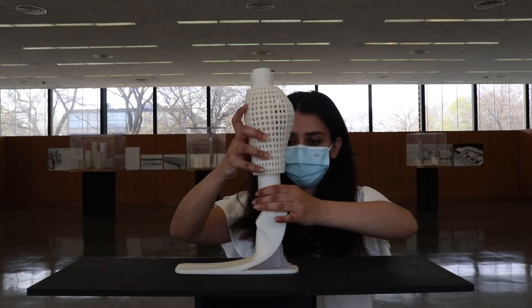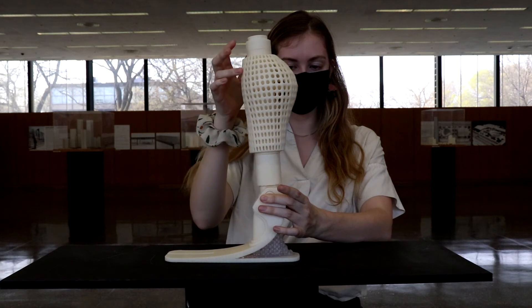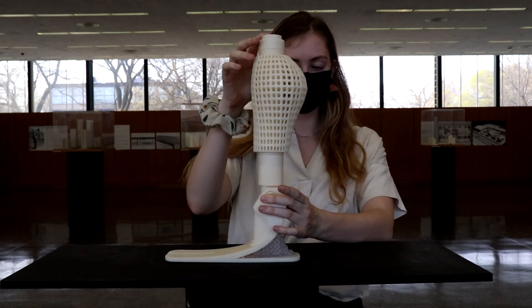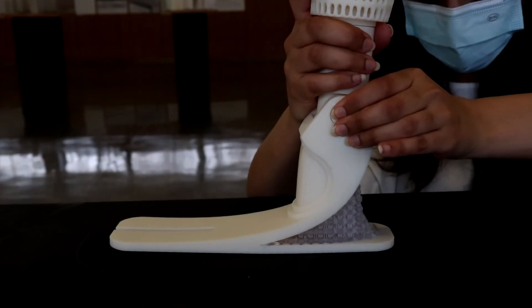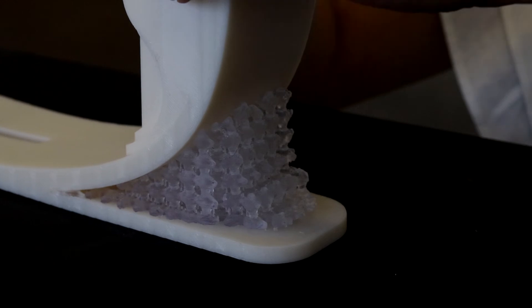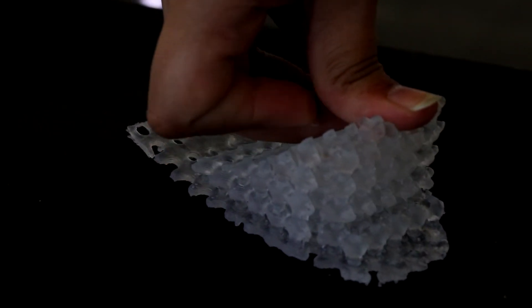The ends of these are twisted and locked onto the ankle and knee joints. They mimic movement during walking but limit rotation of the foot and socket through compressed springs. By 3D printing a generative design elastic Achilles, this provides a soft support and bounce for the heel and foot, as well as the ability to customize the feel through various forms and thicknesses.